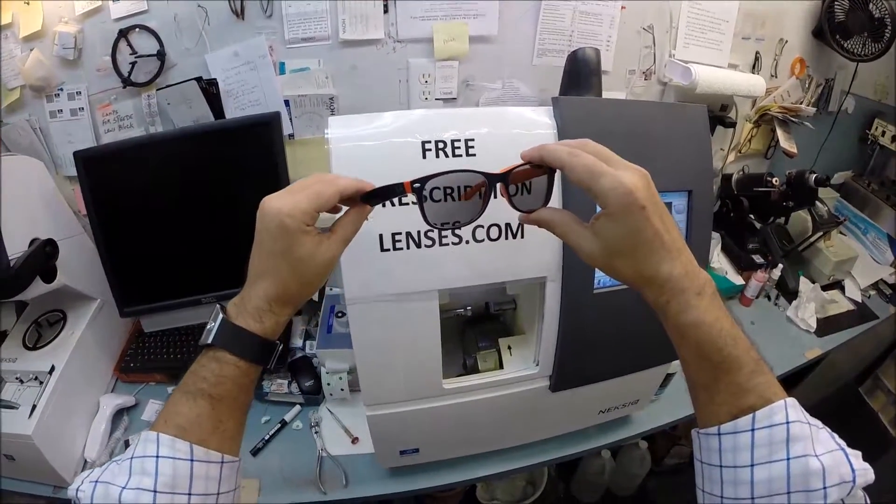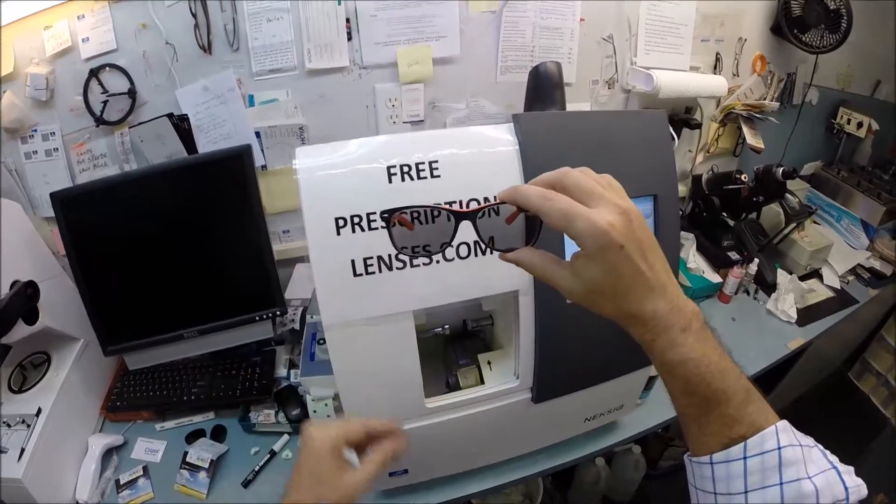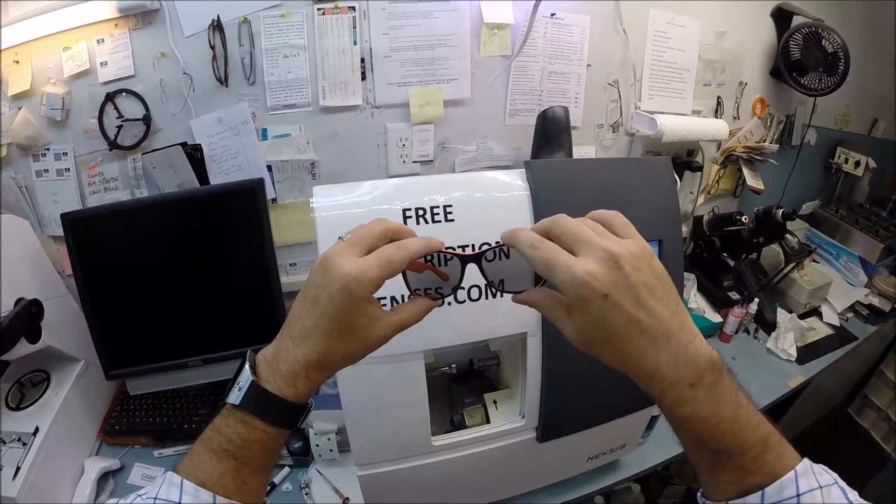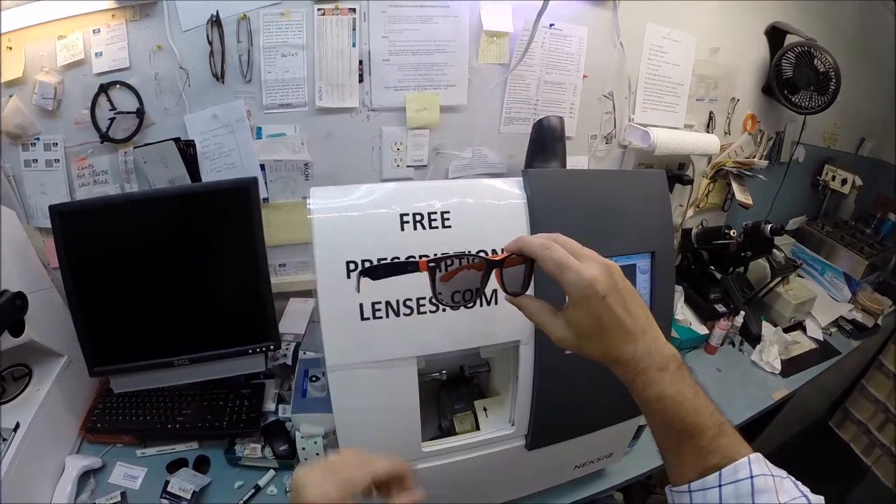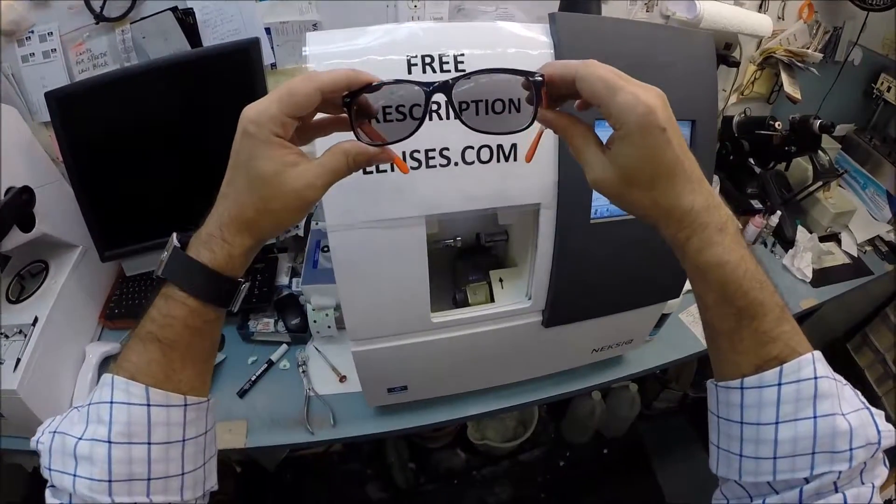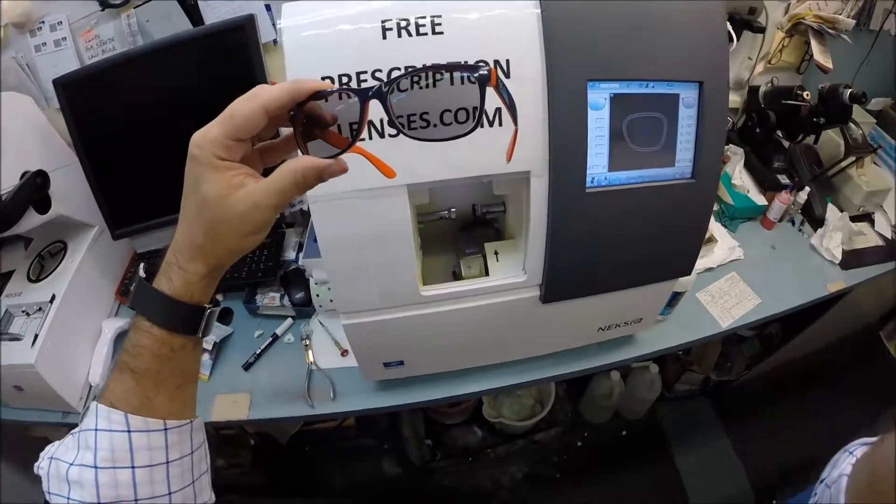If anyone has any questions, just email me at freeprescriptionlenses@gmail.com. Joe in Chicago, I hope you enjoyed watching me as I cut your prescription Transition 7 gray lenses with Crizal Alize. Everyone else has got the chance to see how I bring that love and feeling back to glasses. Thank you.